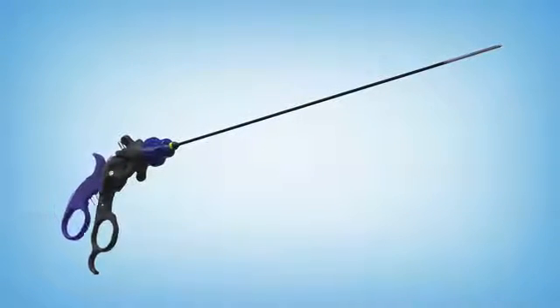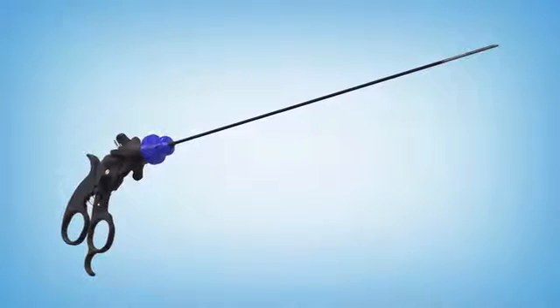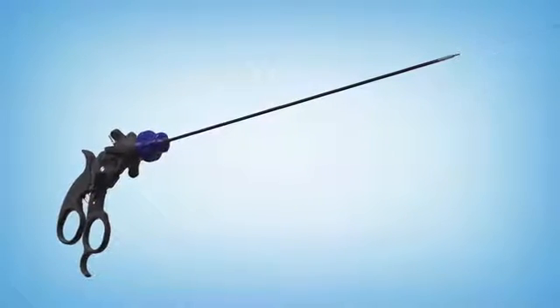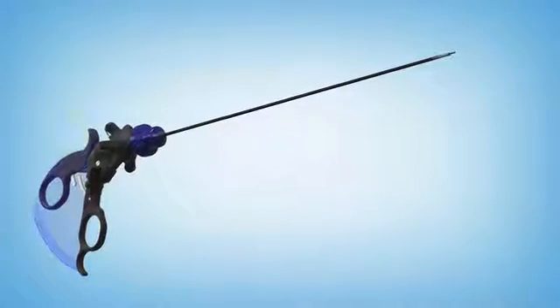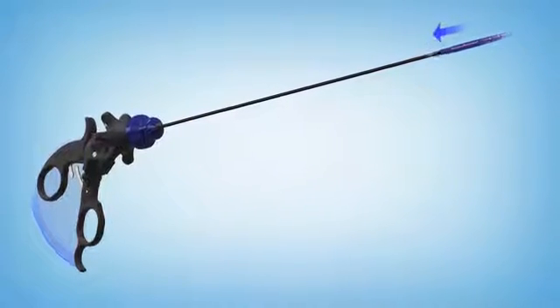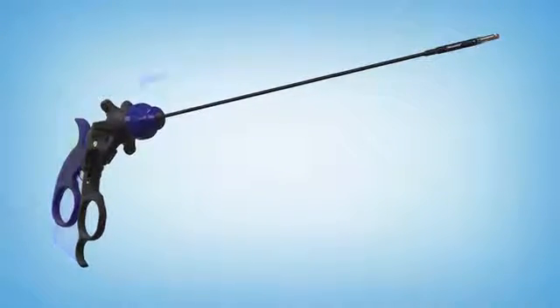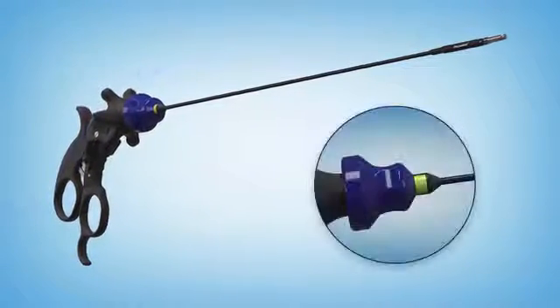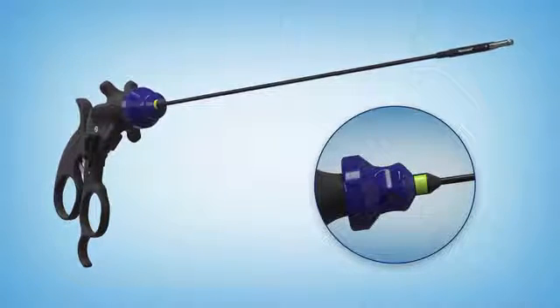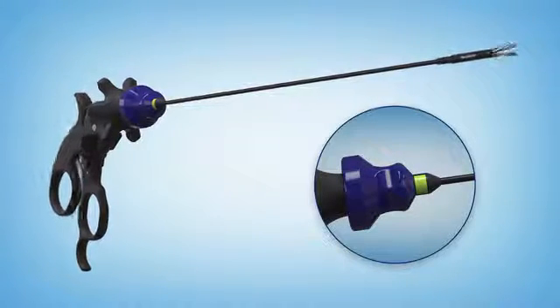The tooltips securely attach to the shaft, yet are easily interchangeable. With the handle open, simply snap the tooltip on, close the handle, and lock the knob. When the green band on the shaft is exposed, you know the device is ready for use.